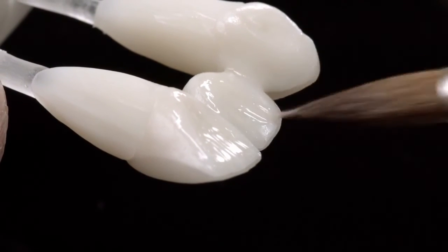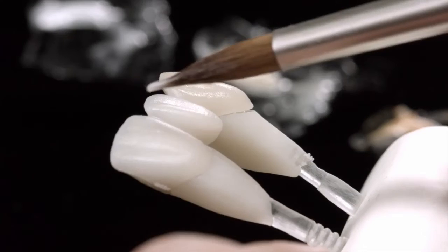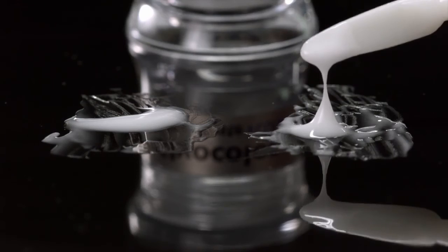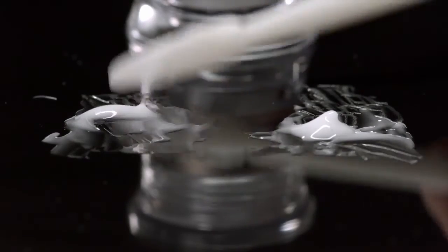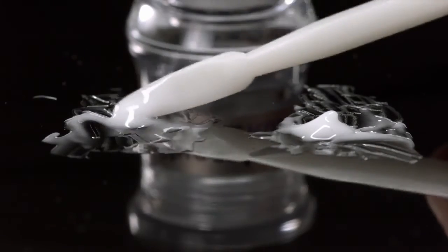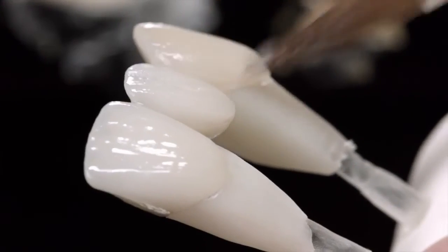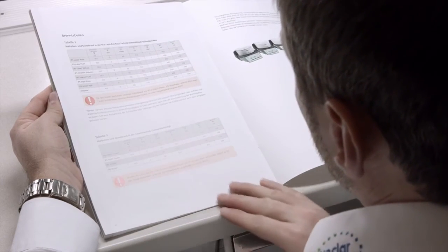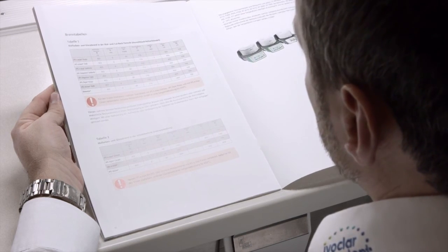The glaze paste gives partially veneered restorations or those fabricated using cutback technique an evenly distributed high-gloss finish. Apply the glaze evenly onto the monolithic and veneered areas. If you require less shine, dilute the glaze paste or use IPS Ivocolor Glaze Powder instead. It is even possible to use a combination of glaze powder and glaze paste. The great advantage of IPS Ivocolor is the low firing temperature, which allows you to glaze restorations with monolithic and veneered parts in a single bake. IPS Ivocolor is suitable for all IPS ceramics with the exception of uncrystallized IPS e.max CAD restorations. During processing, please observe the safety instructions and production details stated in the instructions for use.